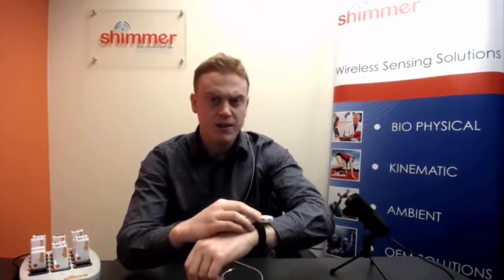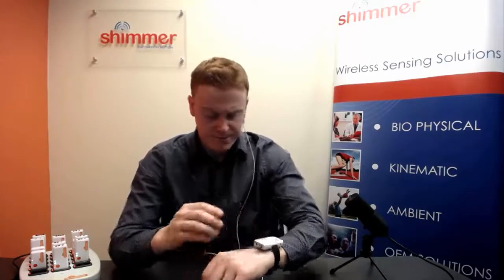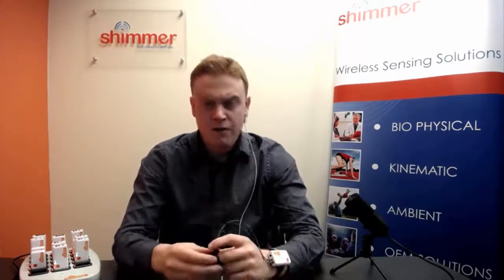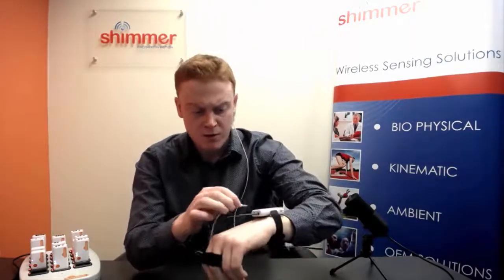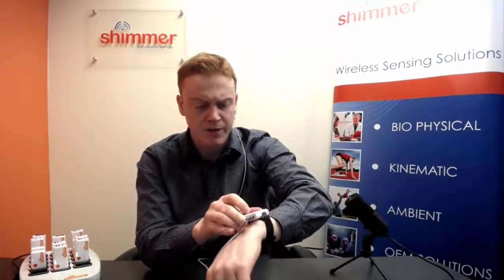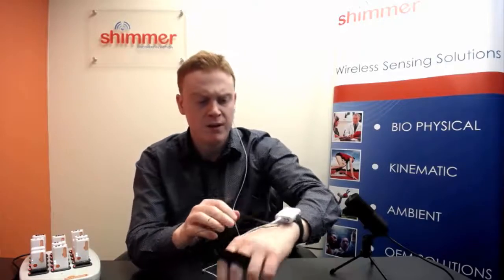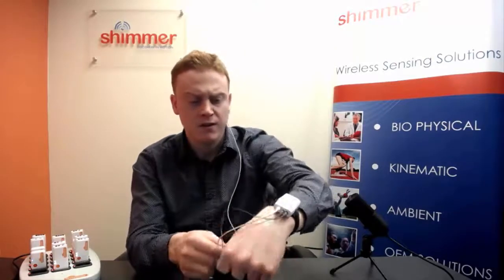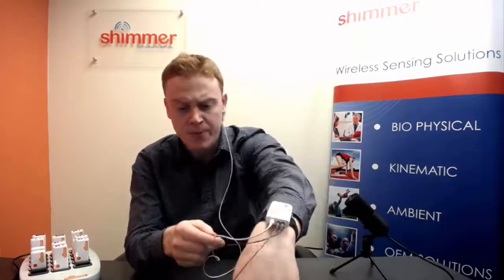For simplicity, I will place this unit on my left wrist. For GSR signals in particular, we recommend keeping movement to a minimum. Therefore, placement on the non-dominant hand is recommended. As you can see, I have the biophysical leads coming from the unit to the GSR electrodes on my fingers. I am also going to connect the PPG sensor, the ear clip in this instance, to the unit and this is connected to my ear lobe.